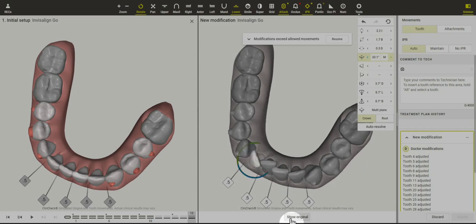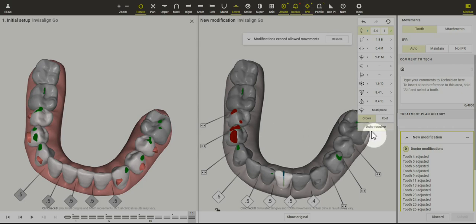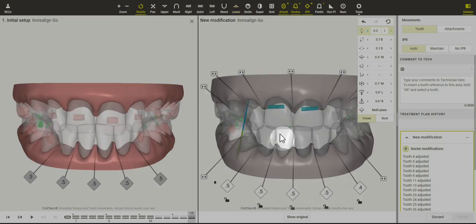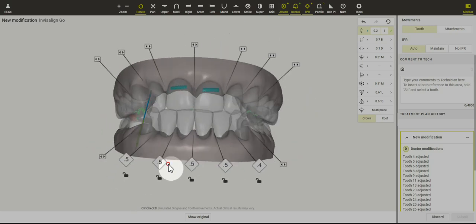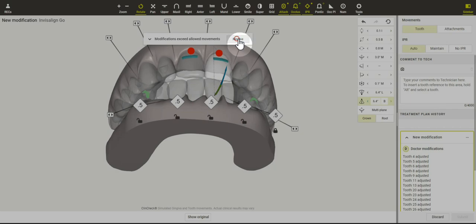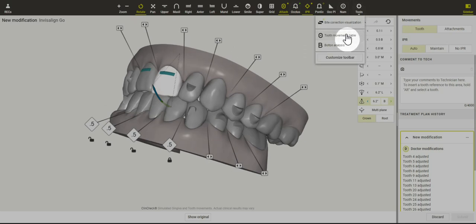This part is not absolutely necessary but while I'm here we'll go ahead and try. There are some red heavy occlusal contacts here because I eliminated the rotation, so we can click auto-resolve. Let me just check on this — still not rotating, but the software did a few tweaks to allow for those to not be in the way. We still need a lot of IPR and still have this contact here — the problem is tipping the crowns buccally.